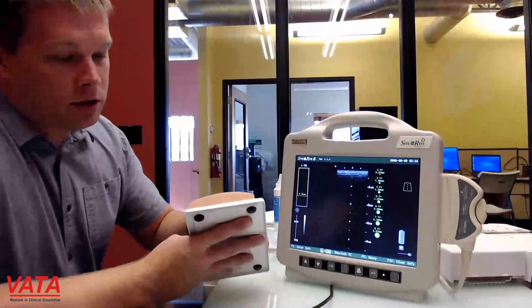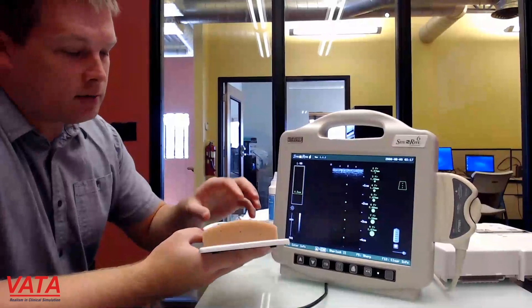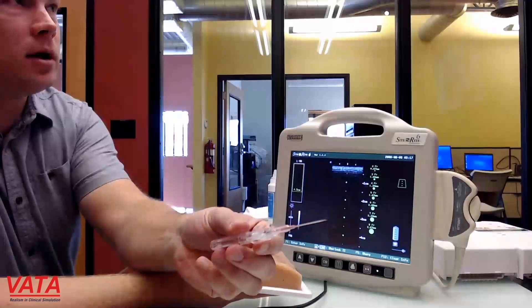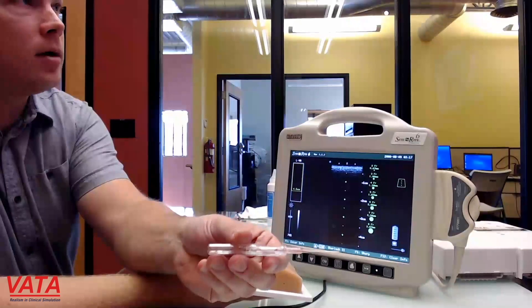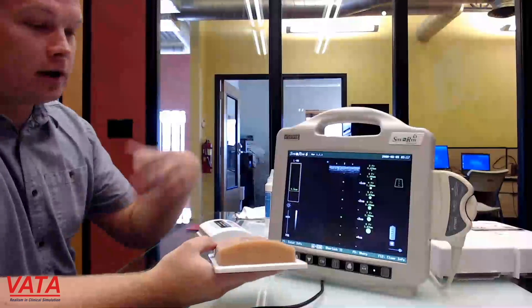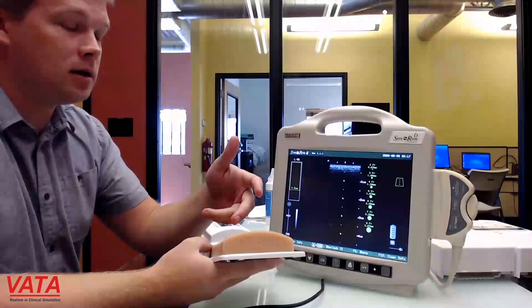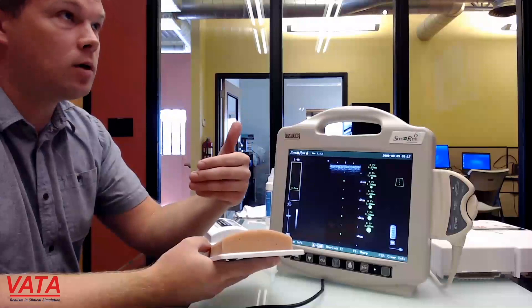With this model, one thing that will definitely happen over time is that as you access — I accessed that time and got a little bit of blood that came out. If you do that a whole bunch and more blood comes out, you will get air bubbles inside the vein, and when you get that it will reduce the image quality.